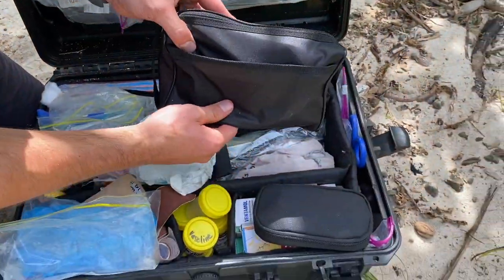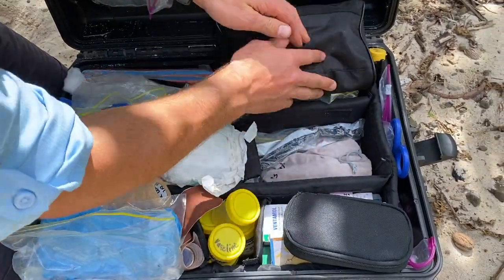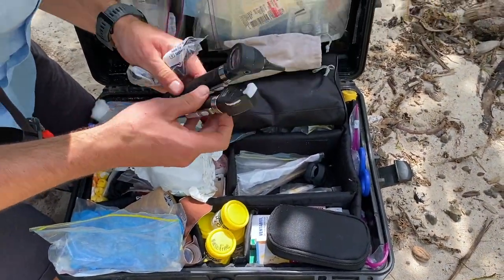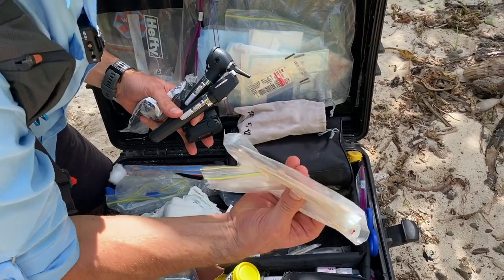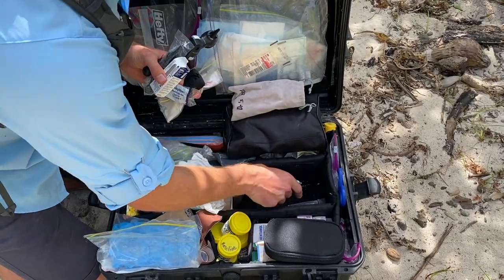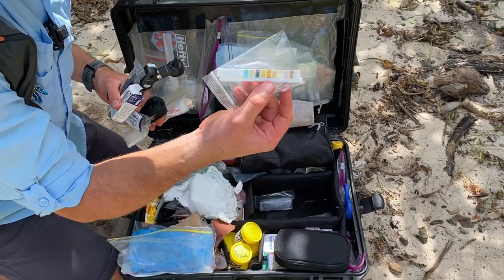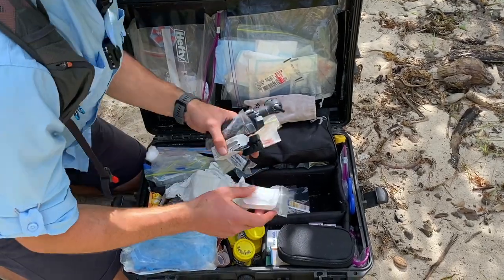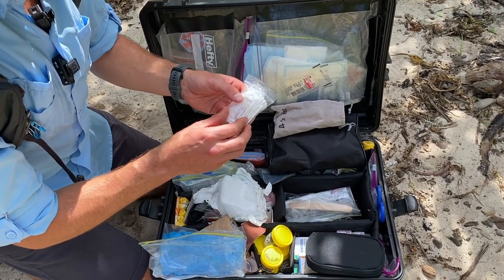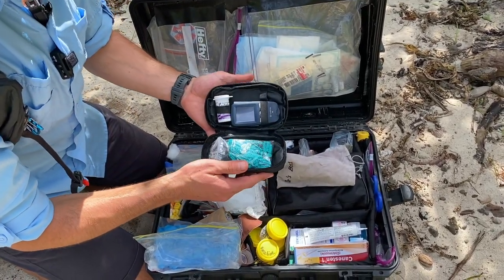This section is diagnostics. In here I've got my stethoscope and BP cuff, a thermometer, an otoscope and ophthalmoscope — little small ones — and a sats probe. Some tongue depressors, spare ear pieces for the otoscope and thermometer. I've got some urine dipsticks — and just to save space I've binned the canister and taken a photo of the colour chart so I can keep those in there. Then some eye stuff: cotton buds to evert the eyelid, a bit of tetracaine and some fluorescein if I need to examine an eye. And this here is a little glucometer to check glucose.